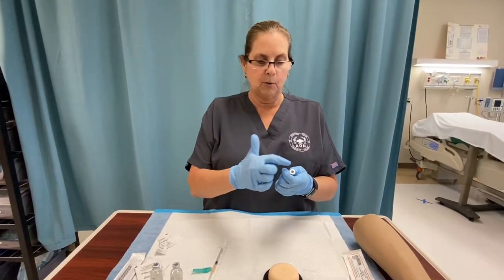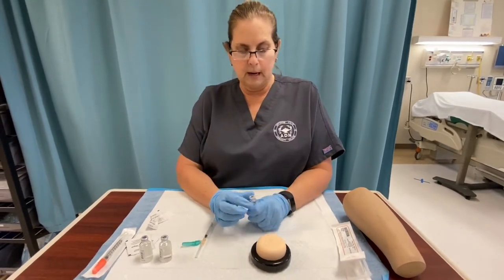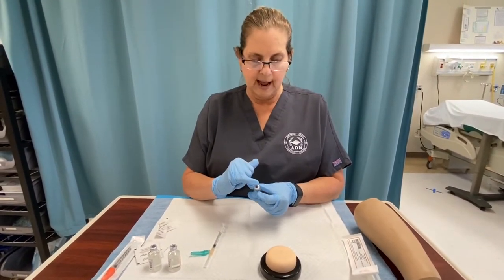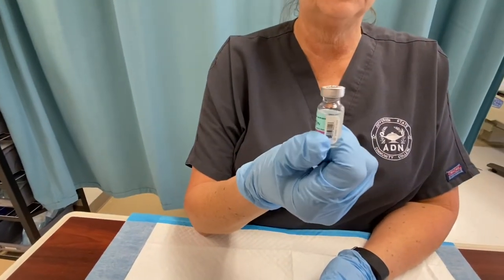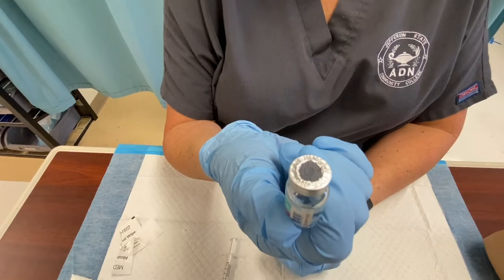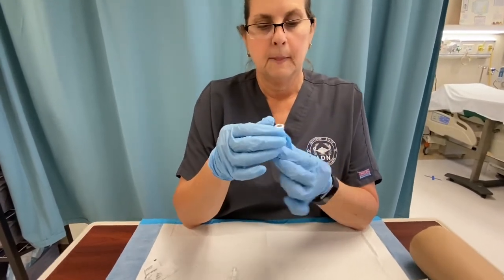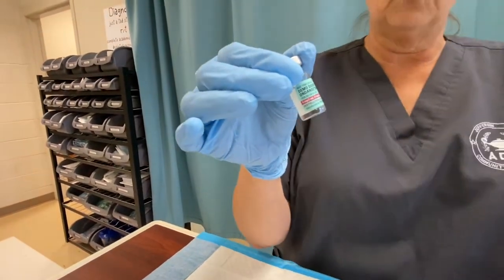Most new medications will have a little plastic top that you're actually going to pop off, and when you come to your skills lab on this, we will all do that together. You pop the top off. All vials are going to have a little rubber stopper. When you remove medicine from a vial, you have to insert air into the vial first before you're actually able to get the medicine out. Things you're always going to check with your vials and any medications is your expiration date on the vial. You're going to look and compare it to your MAR to make sure you have the right medicine.